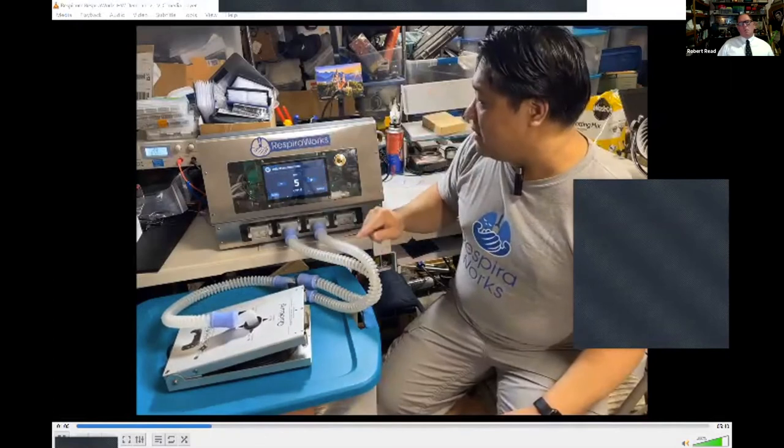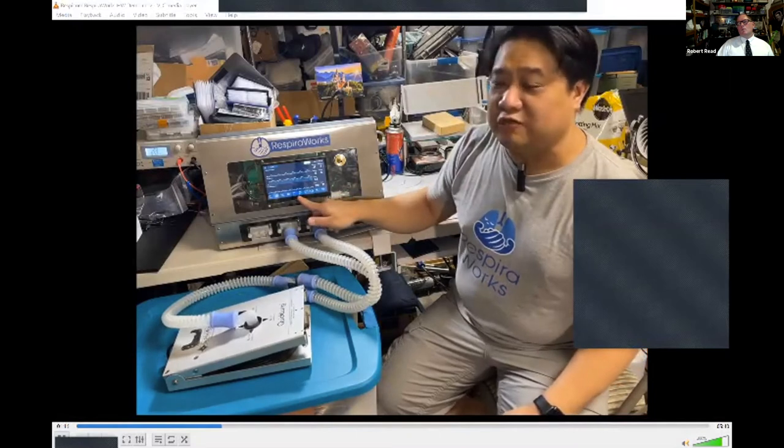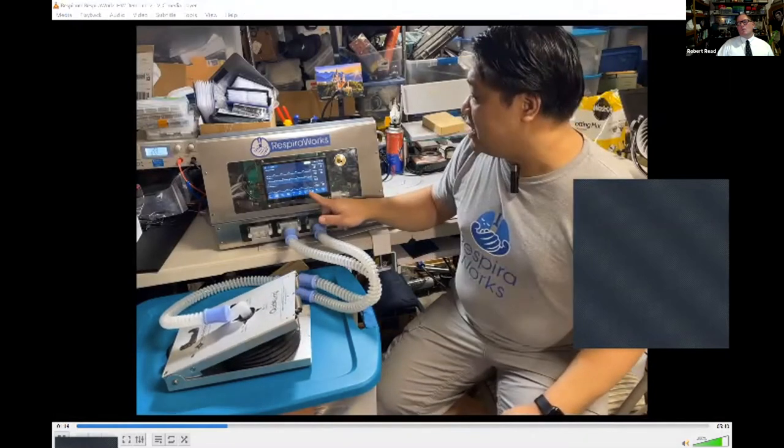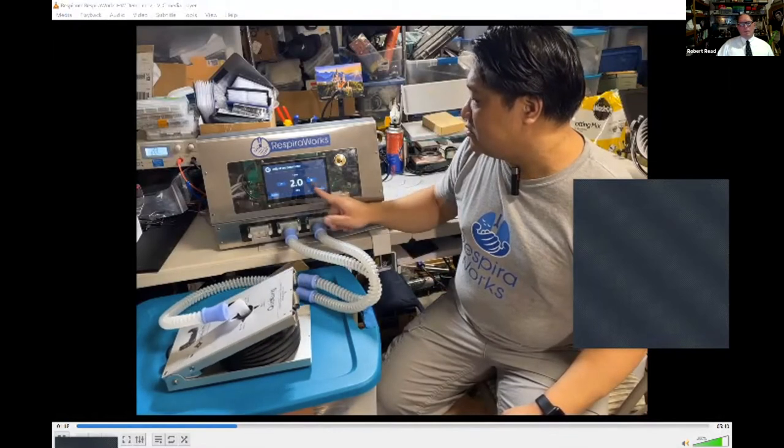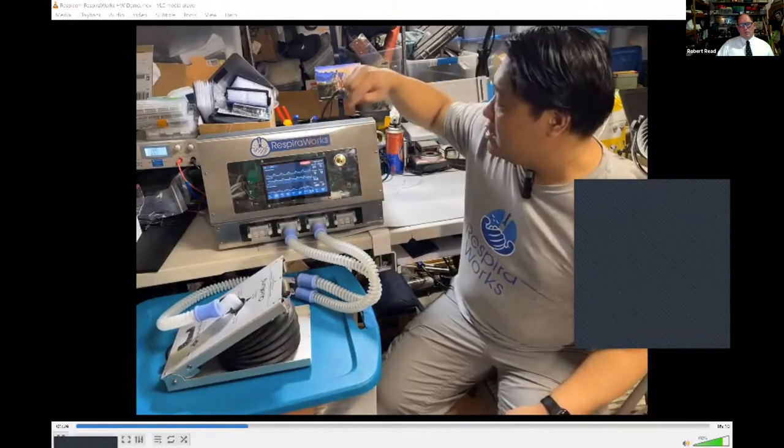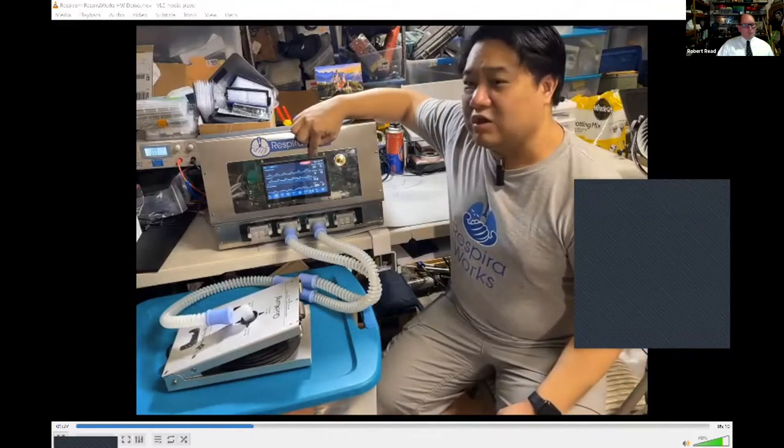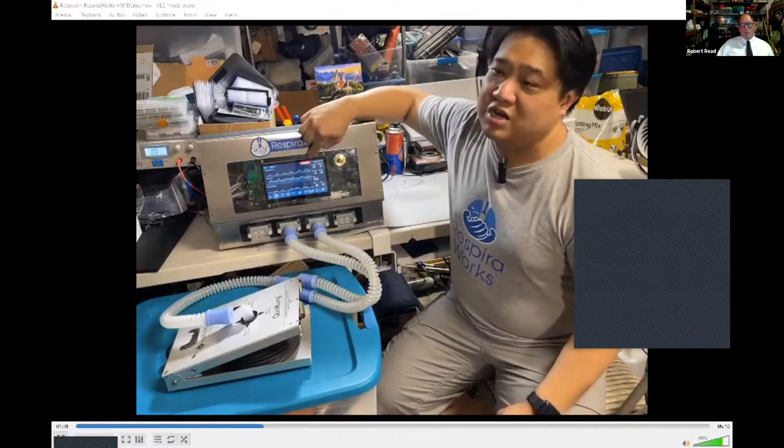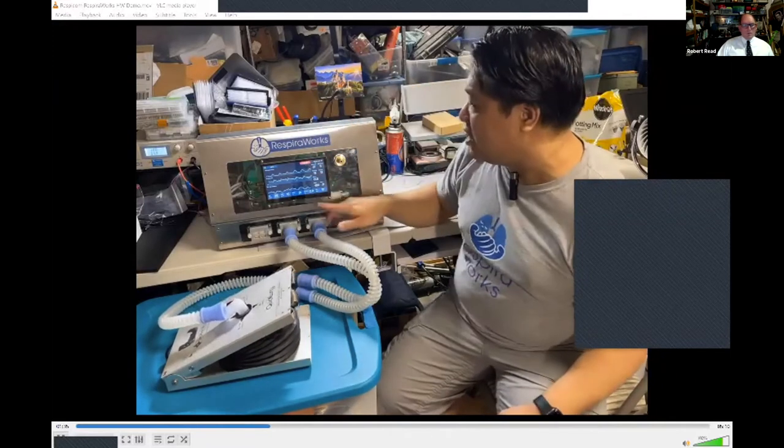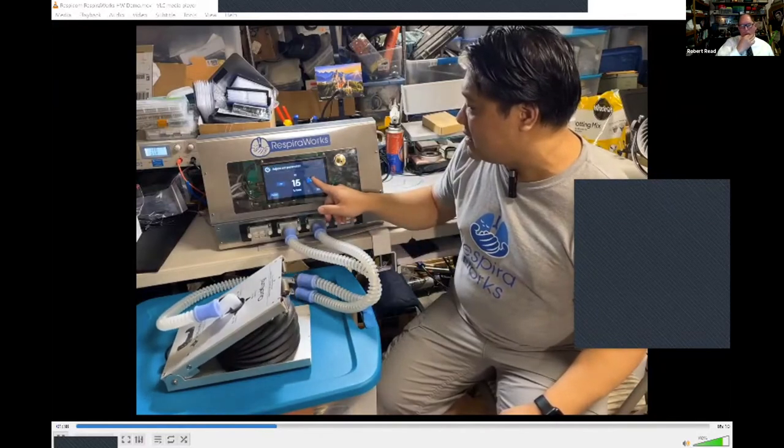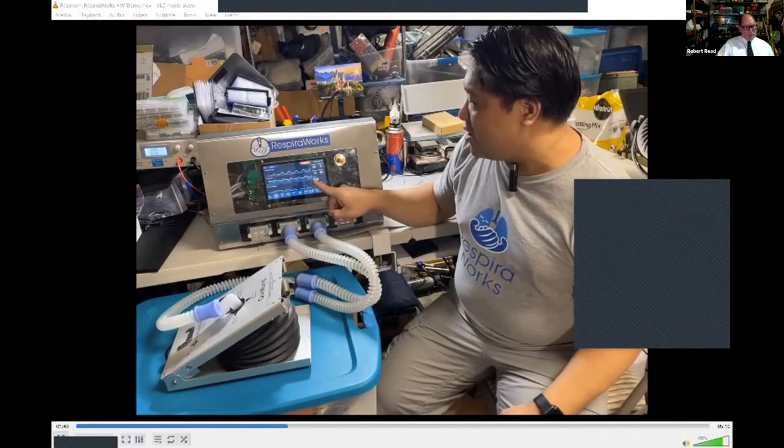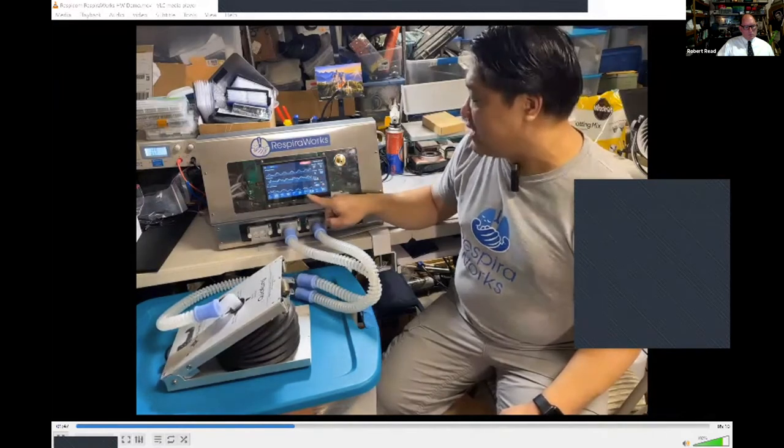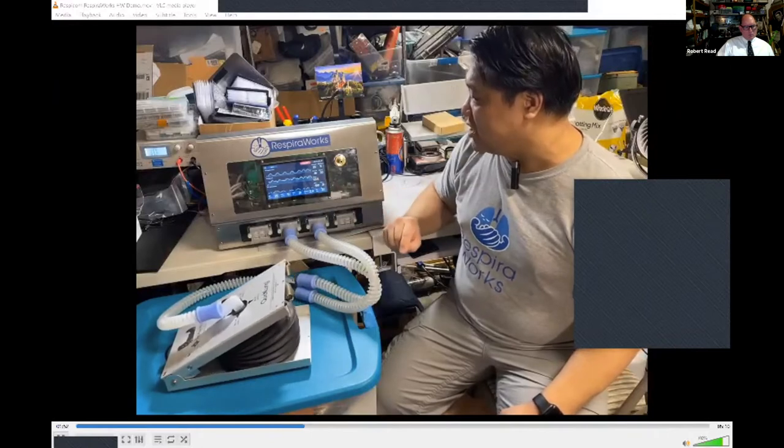Let's set a PEEP of 10, and we'll ignore FiO2 for now because we don't have any oxygen connected. We can set an inspiratory time, so let's make that two seconds. And you'll see here that alarms also have a timer. So if an alarm is paused, when this timer runs out, it will reinitiate the visual and auditory alarm. So we're here at respiration rate, and we can set that to 20 breaths per minute. And you'll also see here on the display that it automatically calculates the IE ratio. So when you set the inspiratory time and the respiratory rate, you get the IE ratio here.